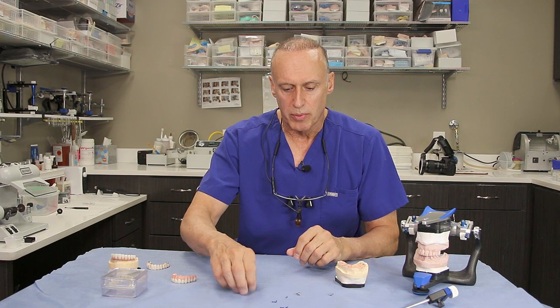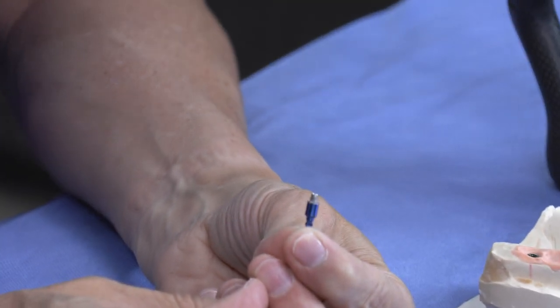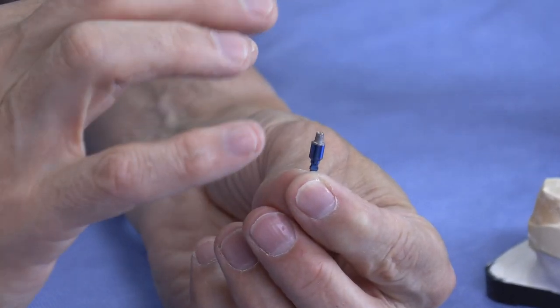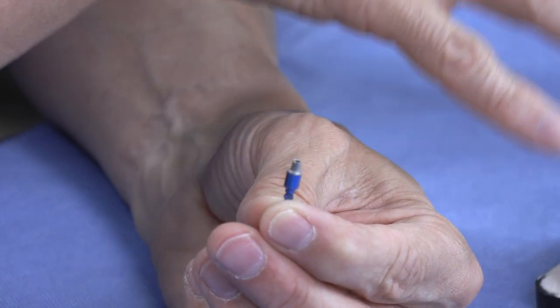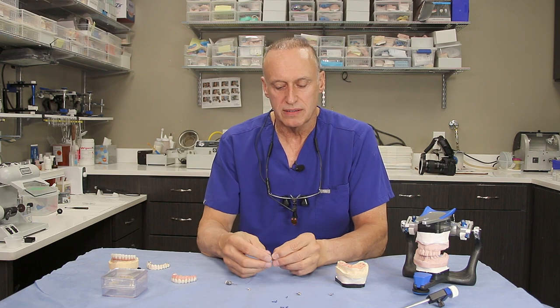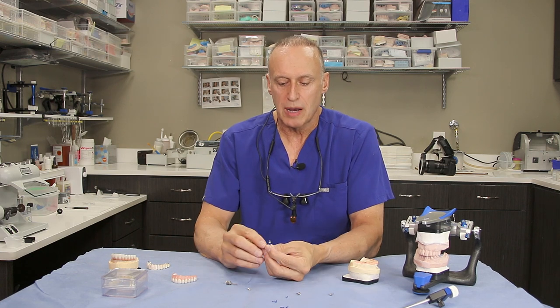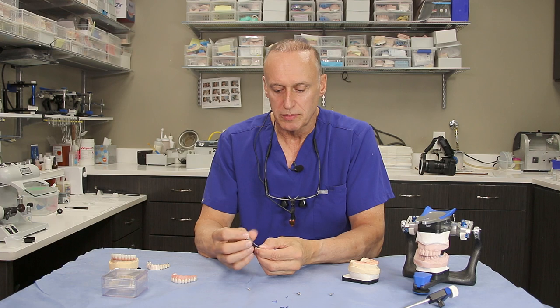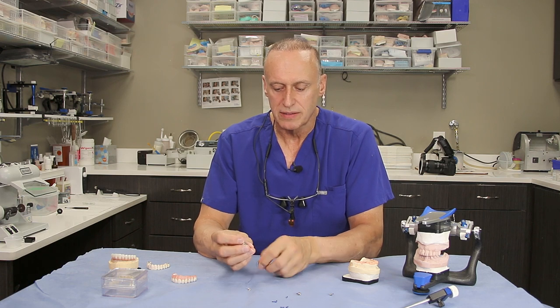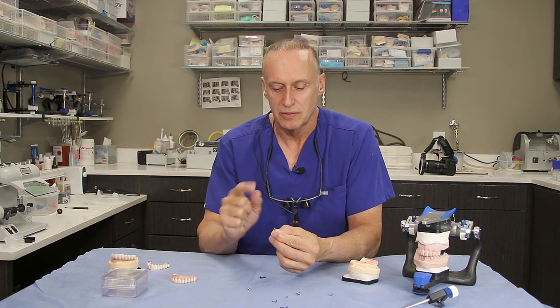I'm going to show you some real small parts and pieces here. The blue thing I'm holding is a lab analog — it simulates what's in the mouth. The very top of it is the actual implant. The analog represents the part of the master cast that we'll use to engage the implant prosthesis. What's on top of the analog is our titanium cylinder, and the titanium cylinders are extremely small. Part of what makes the prosthesis either cleansable or not is this little piece right here.